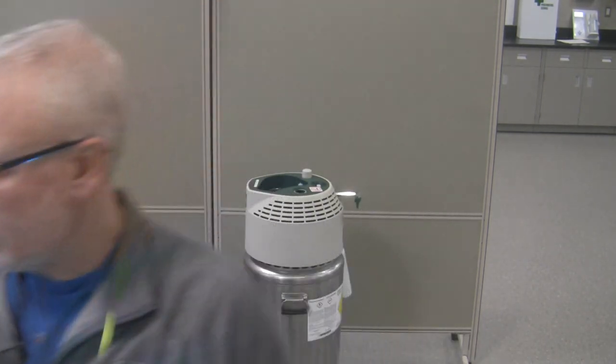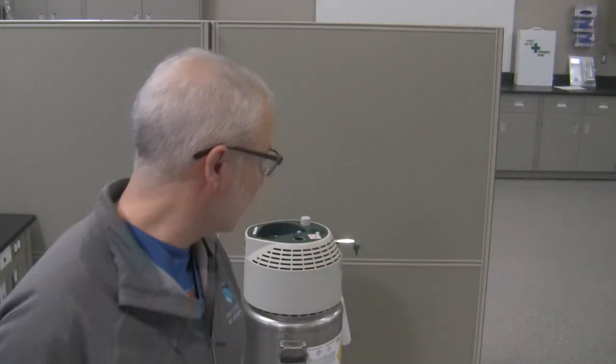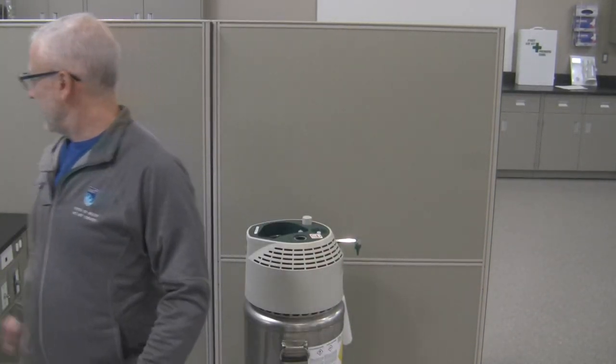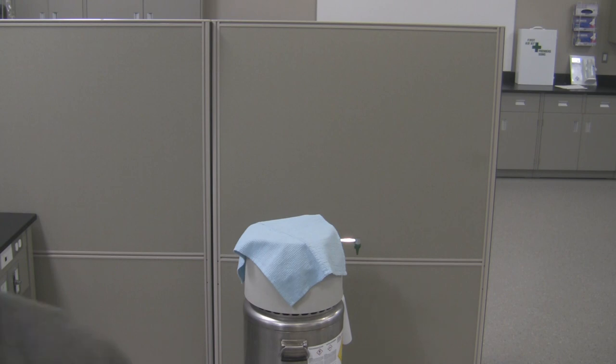Take your safety PPE off and you're good to go. And that's how you fill a portable from that reservoir. Remember, it's really cold — any frosted pieces, don't touch them. When you're done filling, place a towel over top like so and wipe it down next time you're ready to use it. Make sure everything is dry before you contact it — it shouldn't have any kind of moisture or liquid on the portable or on the reservoir when you're getting ready to connect it up. George out — have a great day. If you have any questions or comments, please let me know. Take care.